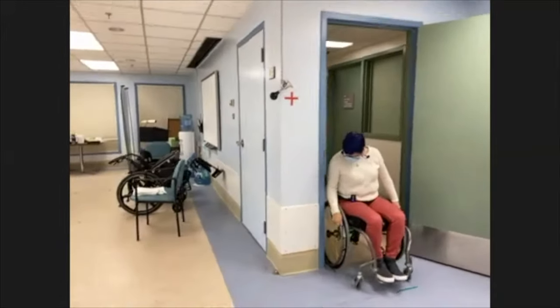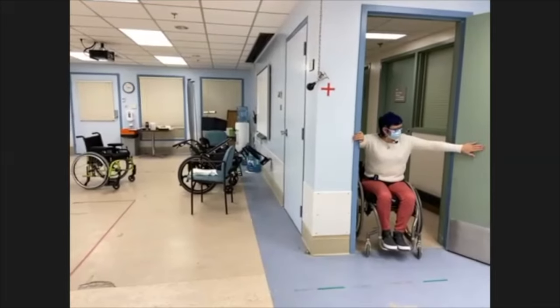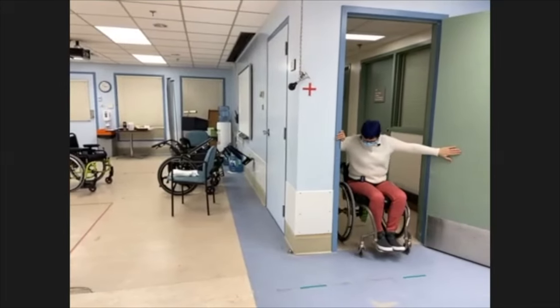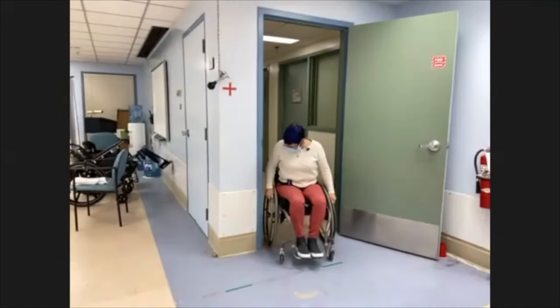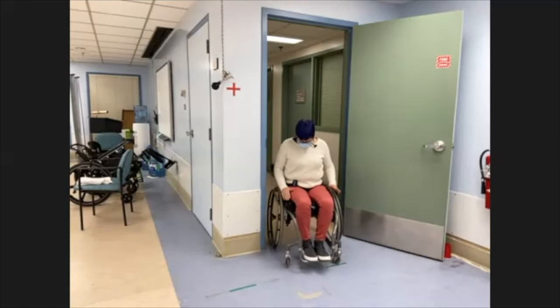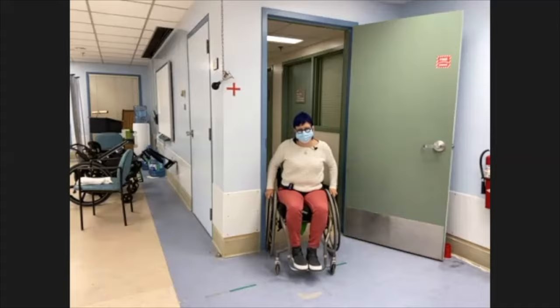That is often a case where you can get a pretty good pinch. When working with folks, encourage them not to have fingers between the door frame and the hand rims. Using flat surfaces and never reaching in between keeps fingers safe. Also, one or two degrees of camber allows the bottom of the wheel to hit before your fingers do.